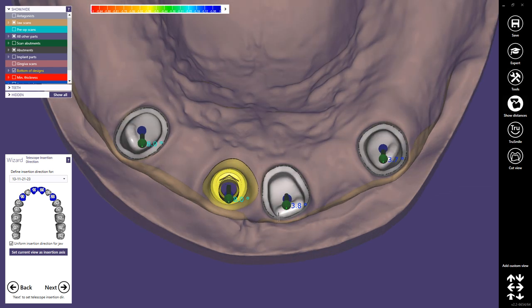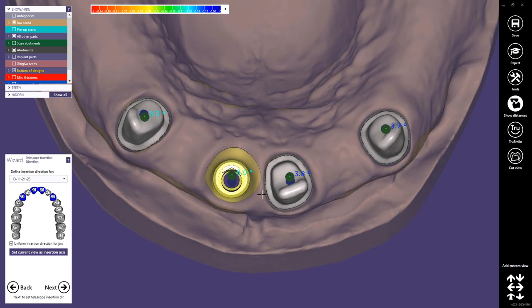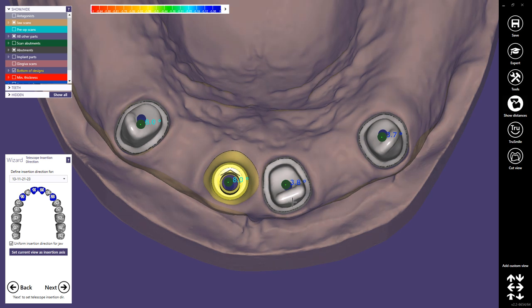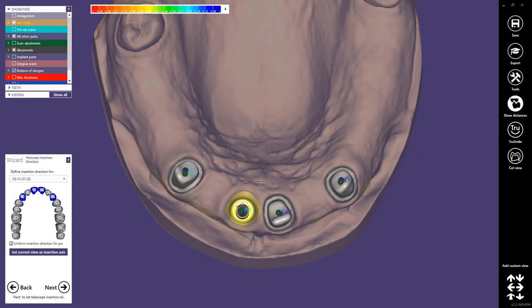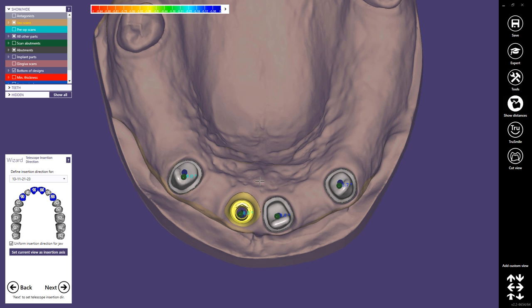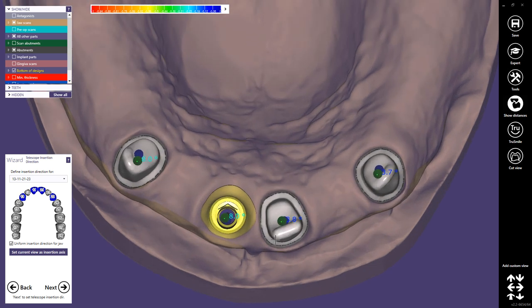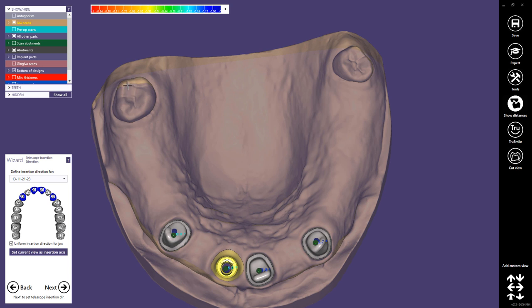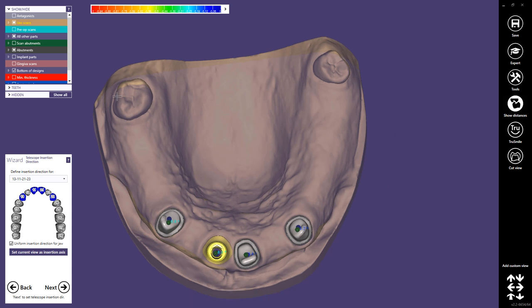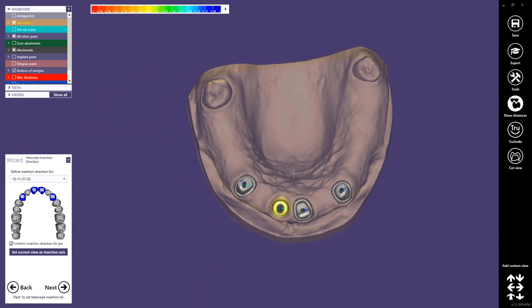We should avoid an insertion that would create a much thicker telescope. It's most important on the buccal dies — on the anterior dies — to ensure a very thin telescope on the buccal side. Here it could get a little bigger on the distal side, but since it's not visible that's not a problem. I think this insertion is already quite good: just make sure we see the entire wall of the die, and check the insertion on the posterior teeth where we will design a clasp on the partial.